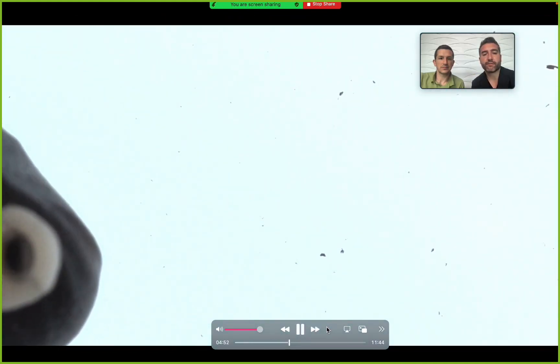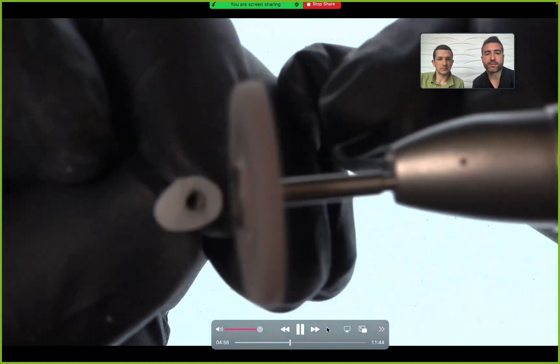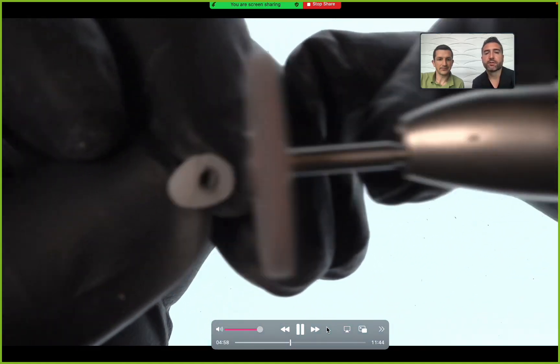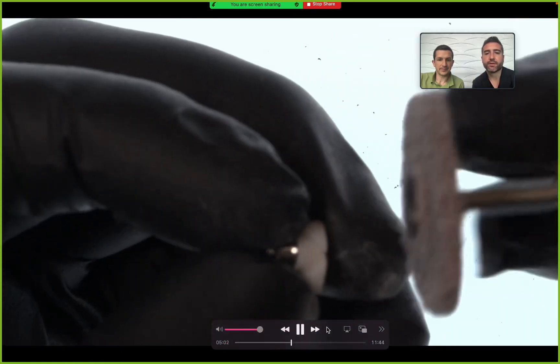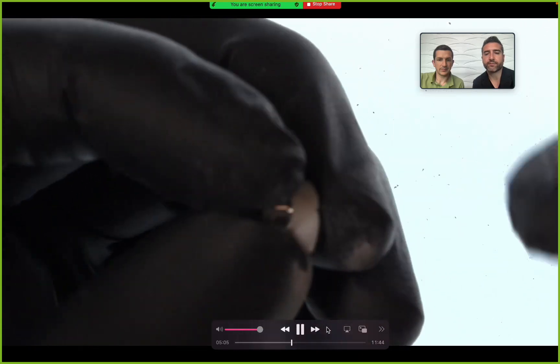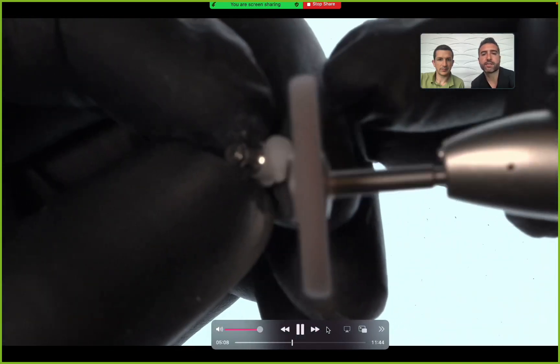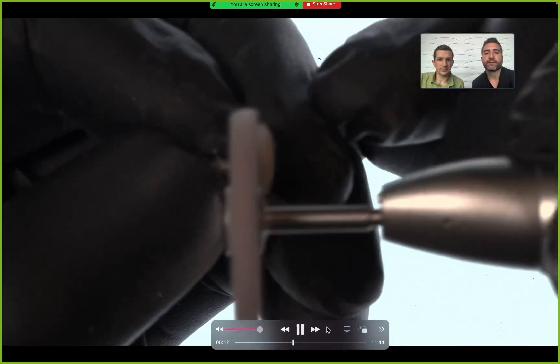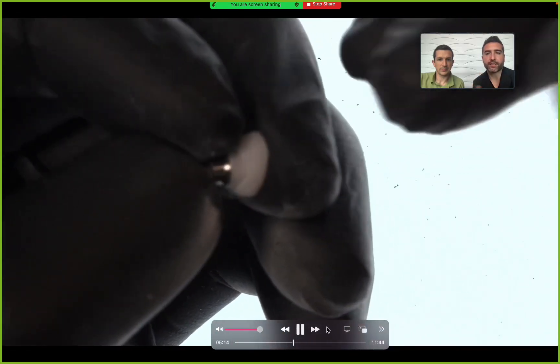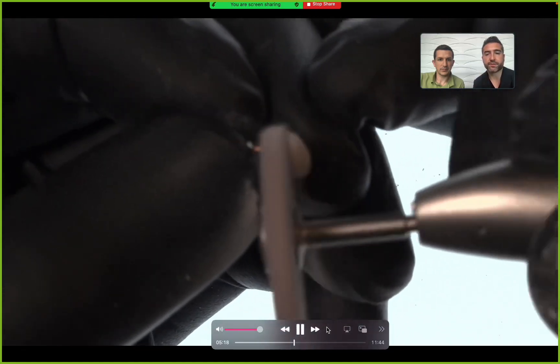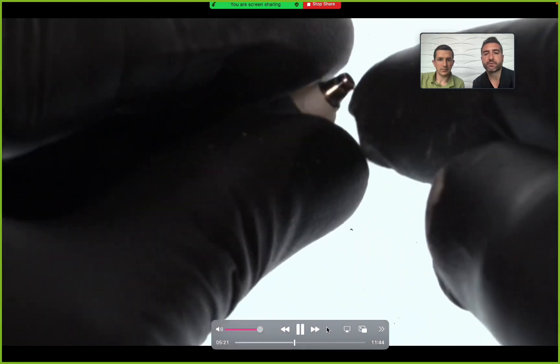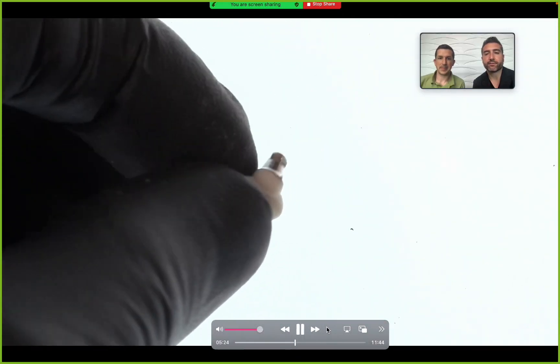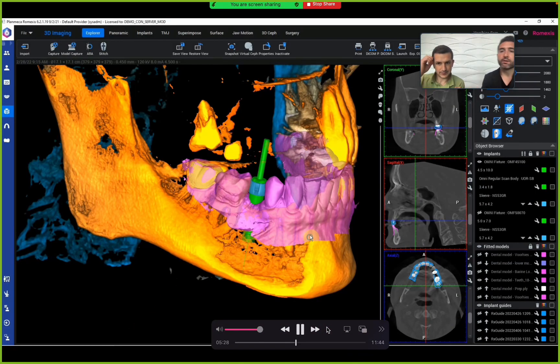After you get it off, polish the top. I'm using this Comet acrylic polishing disc - a soft fiber with polishing particles embedded. I really like this because you can hit the metal and it doesn't scratch at all. It's good at getting the adhesive and glue off the metal surface. Polish the whole underside of your custom healer, making sure it's free of any bumps or irregularities.